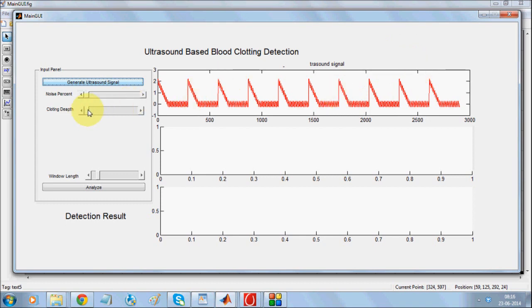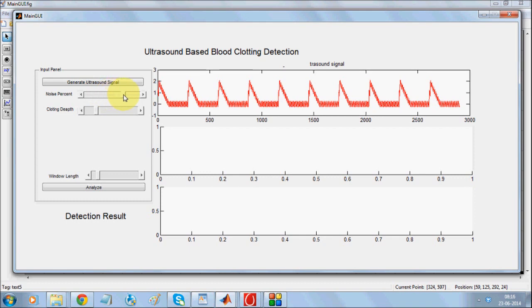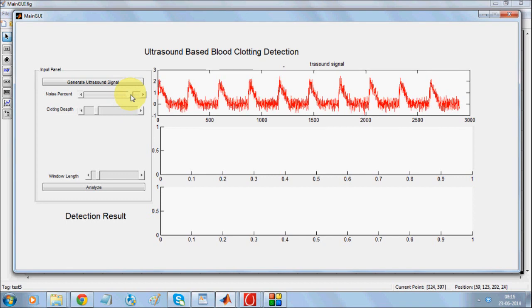Now, in case there is a clot, the signal will deviate, introducing one extra section over here. And if the measurement is not clear — say if there is quite some noise — it gets very difficult for the doctor. The signal will be something like this. It gets very difficult for the doctor to find out that there is a clotting.